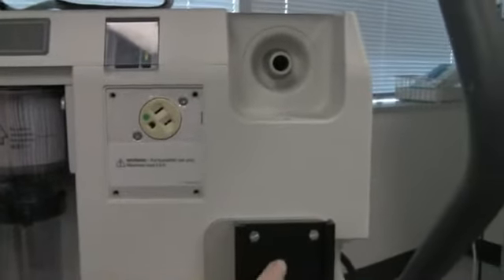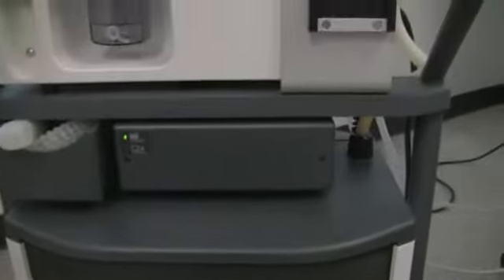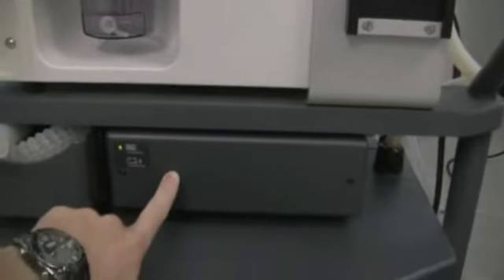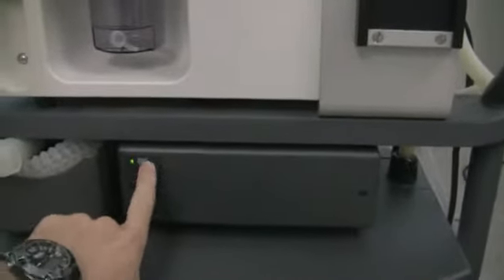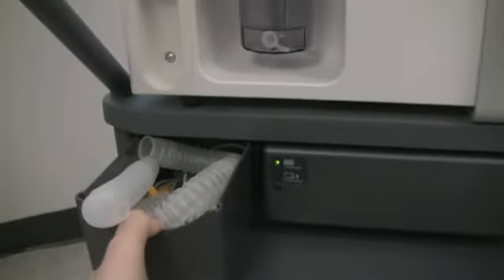An outlet here where we can actually plug in a humidifier that would actually be mounted on here. The compressor down below, we actually have a battery backup here. You can see that it's actually charged or charging based on the light that's on.